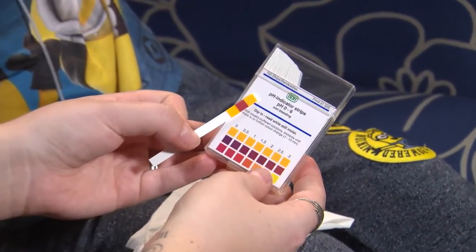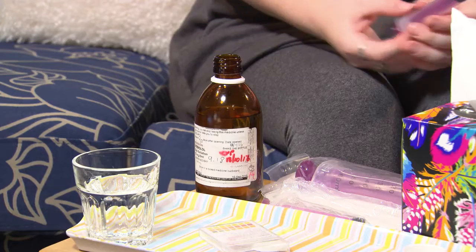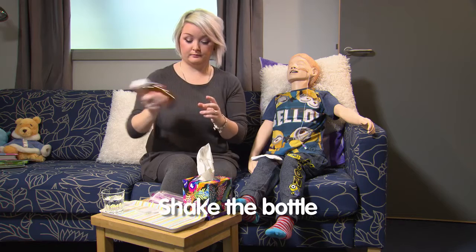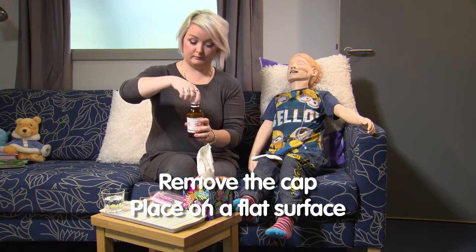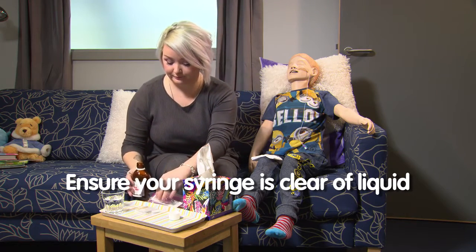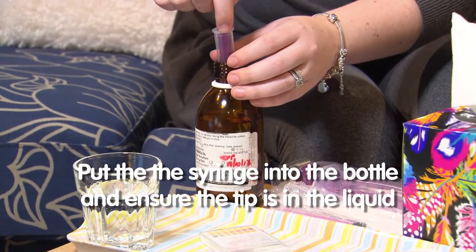Getting the dose into the syringe can be a tricky business. Some bottles come with special rubber bungs which fit into the top of the medicine bottle. In this instance we are using a bottle without a bung and will be drawing the medicine directly from the bottle. Firstly you need to shake the bottle well, making sure the cap is firmly on. Remove the cap and place the bottle the right way up on a flat surface. You need to ensure that the syringe is clear of any liquid before administration — this happens automatically if you are using a medicine bottle with a bung. Put the tip of the syringe into the opening of the bottle, making sure it's in the liquid.